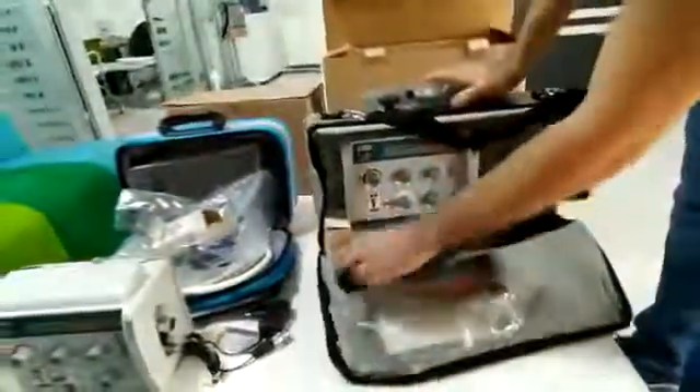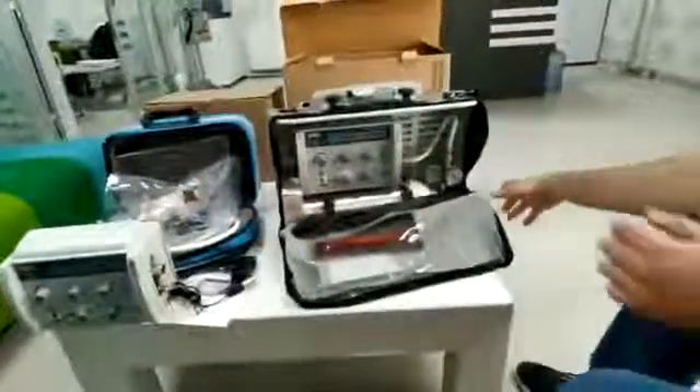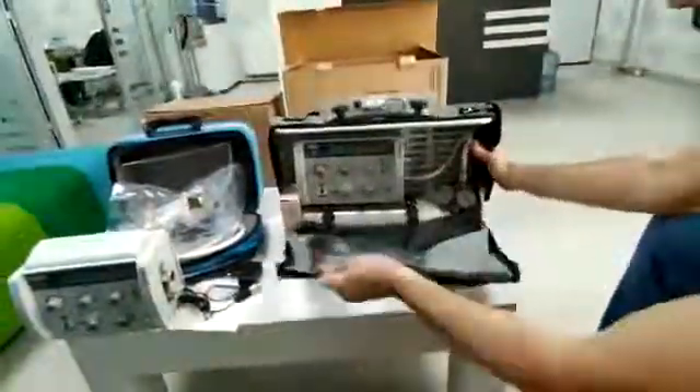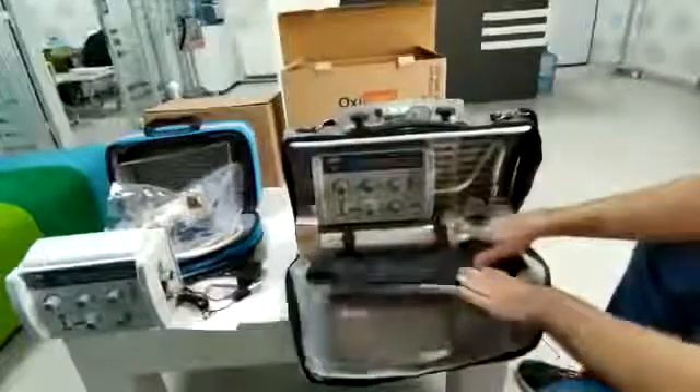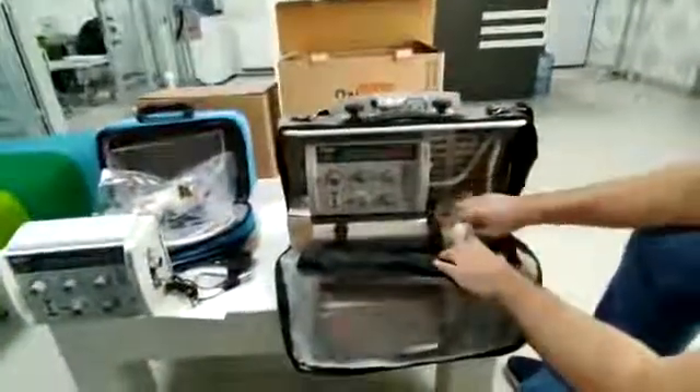You have to mount like this to the ambulances. We have a power supply. And this model has an oxygen tube and regulator built into itself.